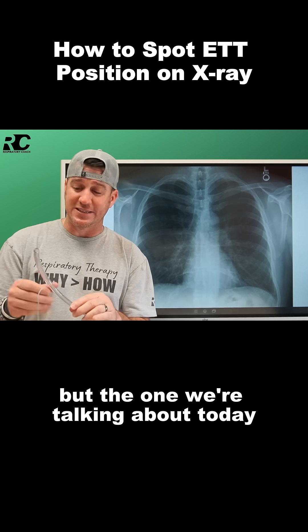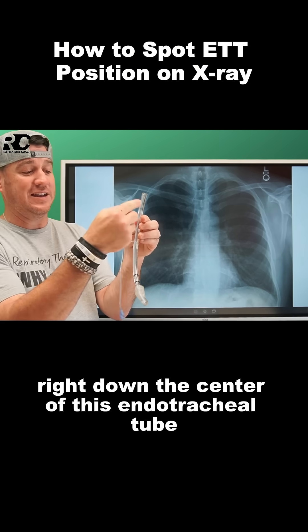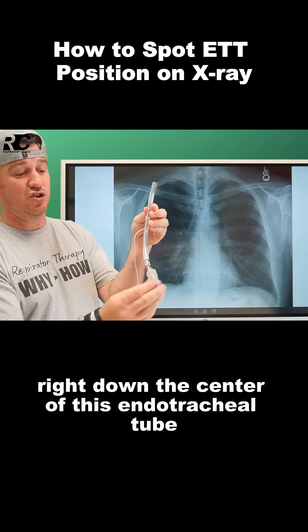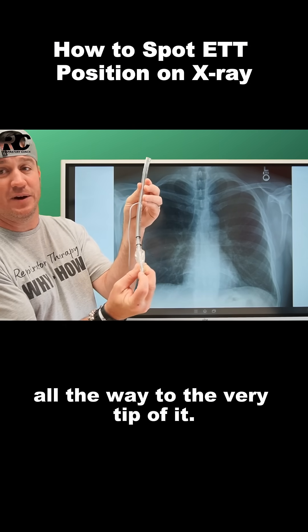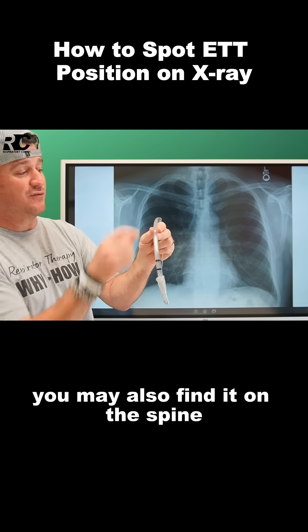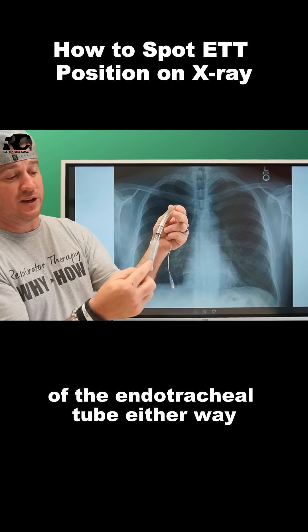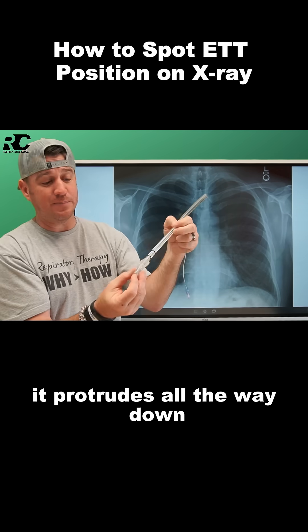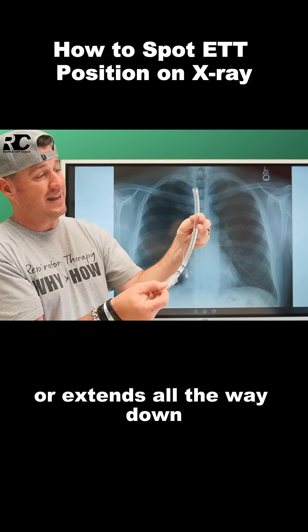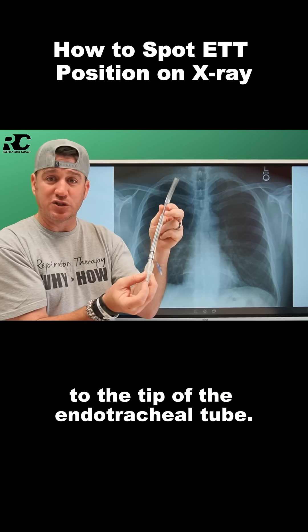The one we're talking about today is this blue line that runs right down the center of this endotracheal tube all the way to the very tip of it. You may also find it on the spine of the endotracheal tube — either way it extends all the way down to the tip.